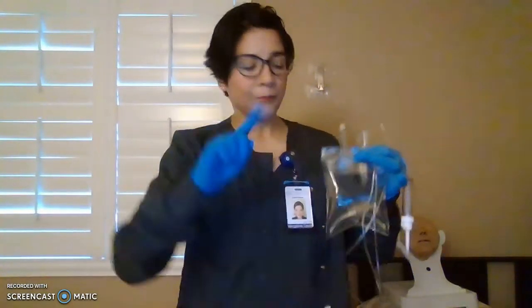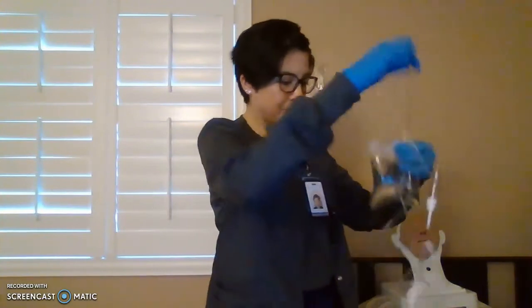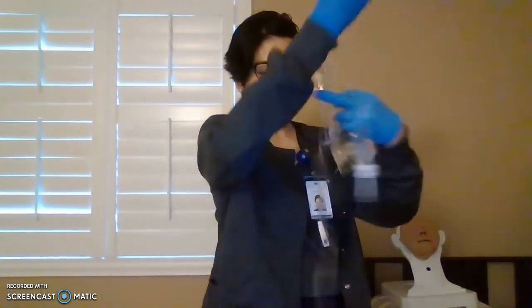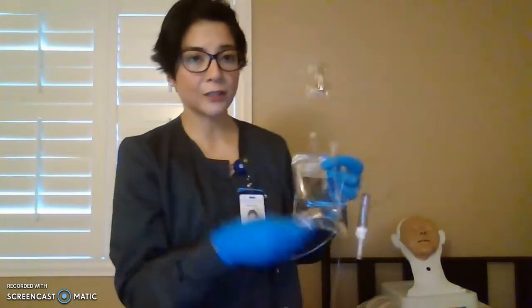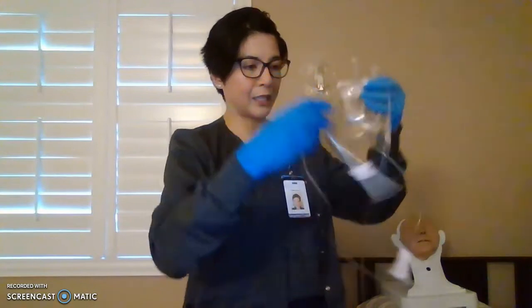So now, first things first, we have to prime your line, your tube. Priming meaning we are removing air, and we are filling the tube with fluid. We don't want any air, we want the fluid in your patient. So how do we prime? Before anything else, make sure that your clamp is off. Okay, off. See, it's not moving, so there's no fluid that's going to run. We don't want to waste any medication once we spike it.